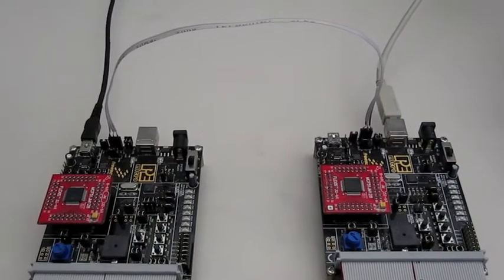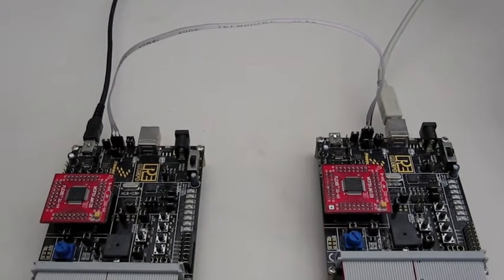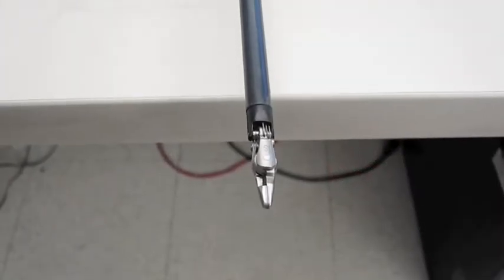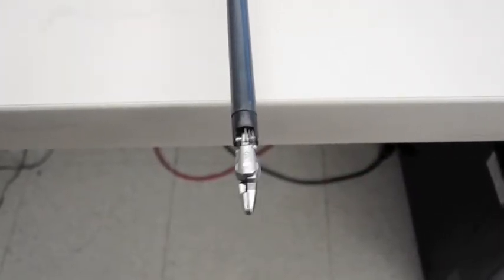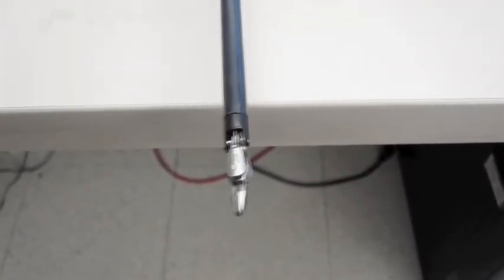Finally, the two microcontrollers are connected using a controller area network. All of these elements allow the user to control the grip and roll of the endo-wrist, as seen here.